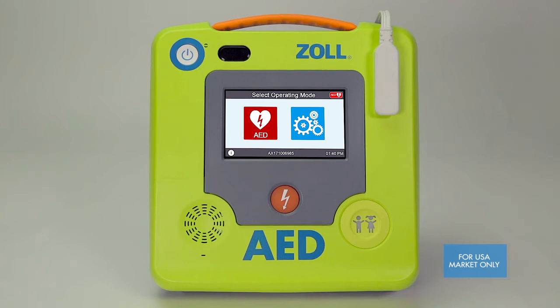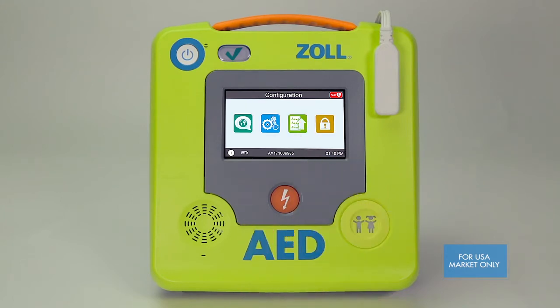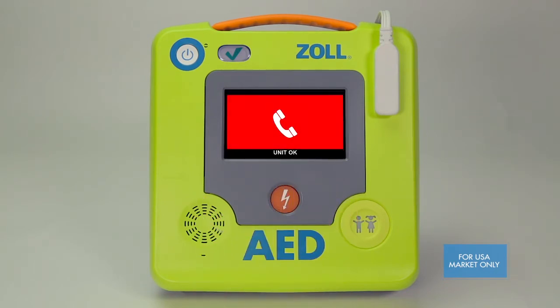The AED will now display two large icons: a blue gear icon and a red heart icon. When this screen appears you'll receive prompts indicating the type of AED you have and it will also indicate unit status. When selected, the blue gear icon will bring you to the basic configuration screen. The red heart icon will immediately place the AED in rescue mode. Note that if you do not select the blue gear configuration icon within 30 seconds, the AED will automatically go into rescue mode.